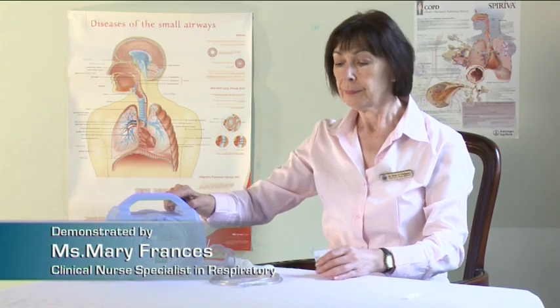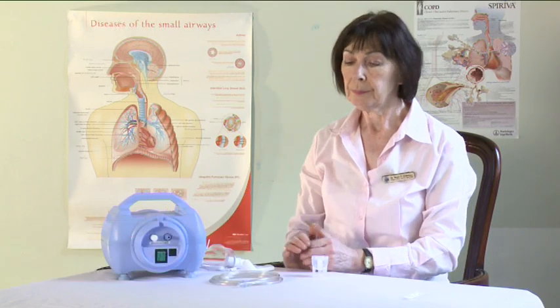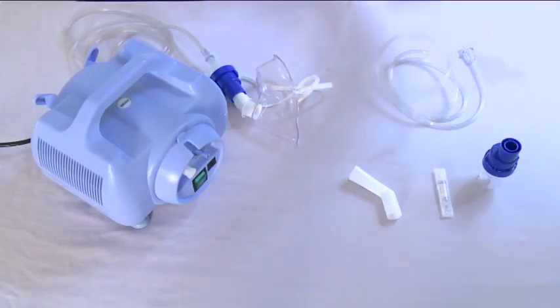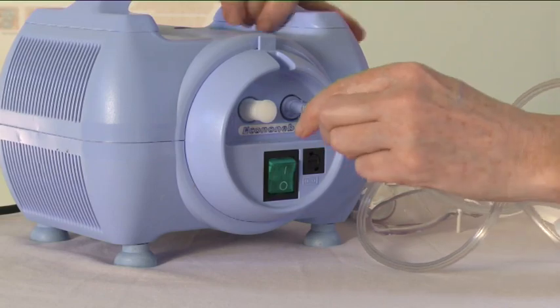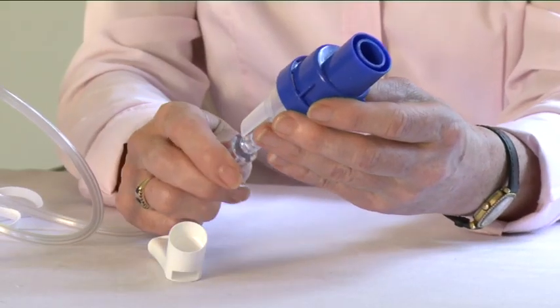Steps to use a nebuliser. Wash your hands thoroughly before you use a nebuliser and make sure the equipment is clean. Connect the nebuliser tubing to the port of the compressor on one end and the other end to the nebuliser itself.